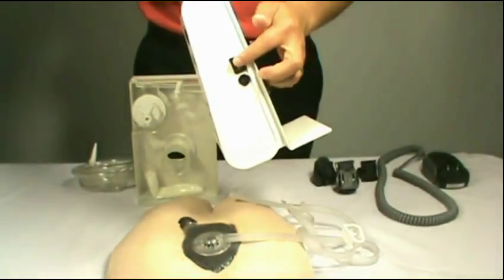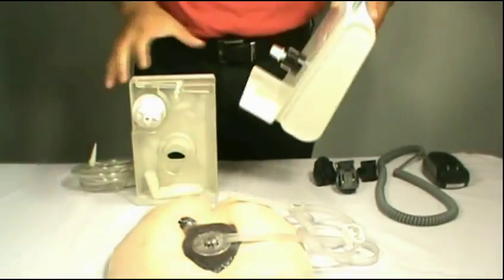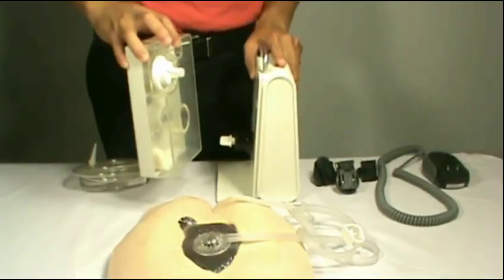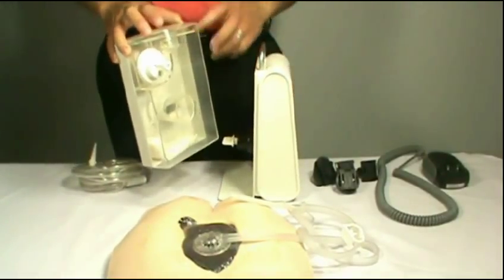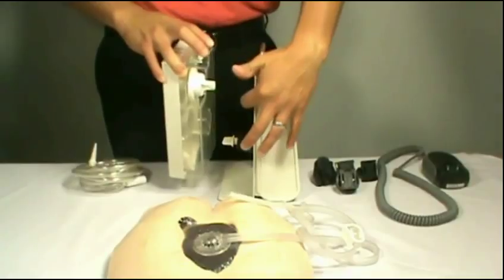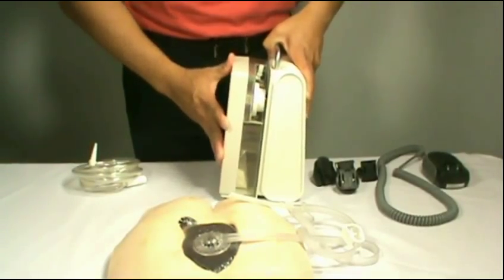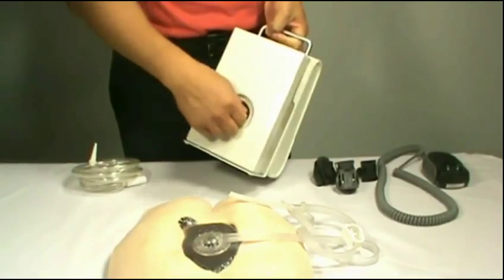This is where your on and off switch on the Halo XP is located. Align the canister to the Halo XP pump making sure all the holes are lined up properly. Push the canister in and you should hear a snap. Once you hear a snap just lock it.